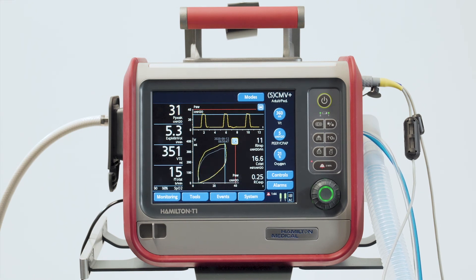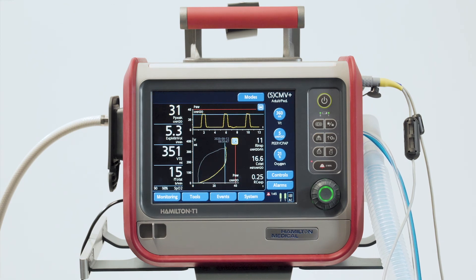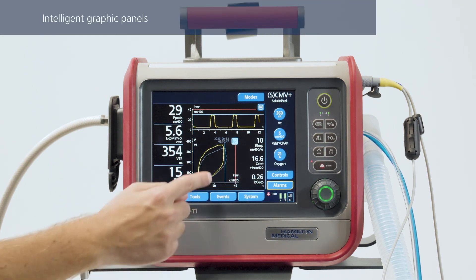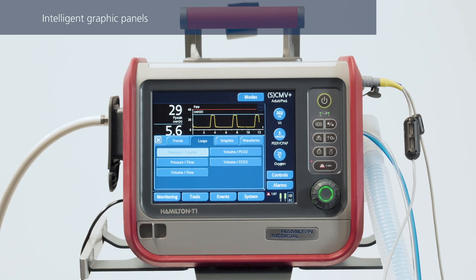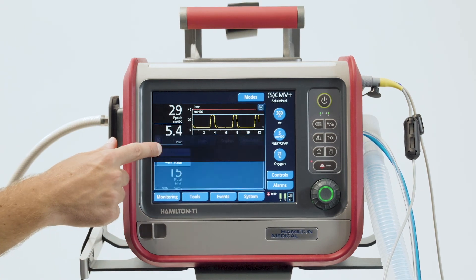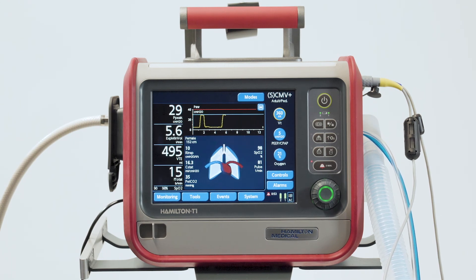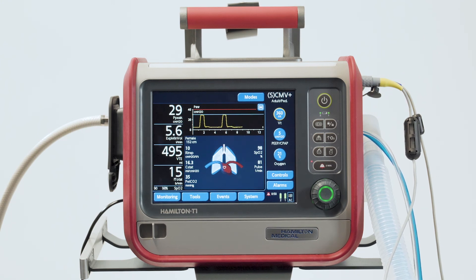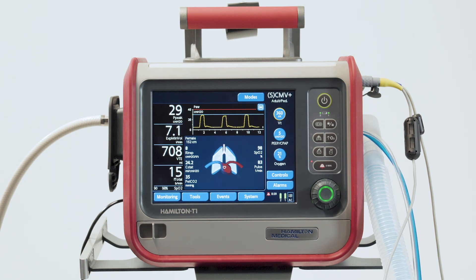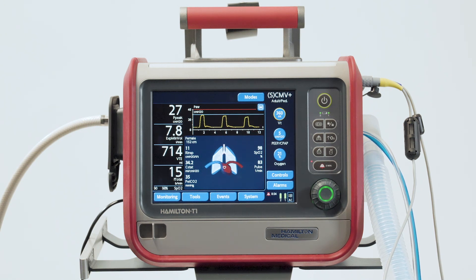Both loops — the current and the past one — can be displayed together and analyzed. To make it easier to interpret all the different information, we've combined the clinically relevant patient data in dynamic representations. To display one of these intelligent panels, touch anywhere in the graphic area, then touch the graphics tab, and select the panel you want to see. With just one quick look at the dynamic lung panel, you'll get an idea in real time about the tidal volume delivered, the respiratory system compliance, the airway resistance, and patient triggering. Instead of having the different pieces of information presented separately, you can see it all combined in one moving lung graphic.